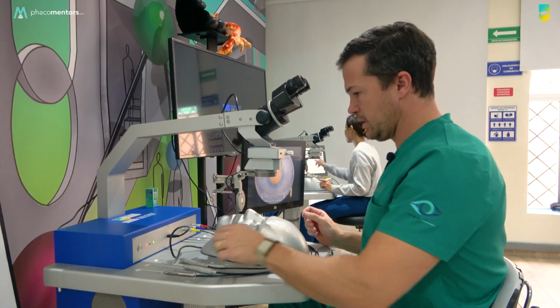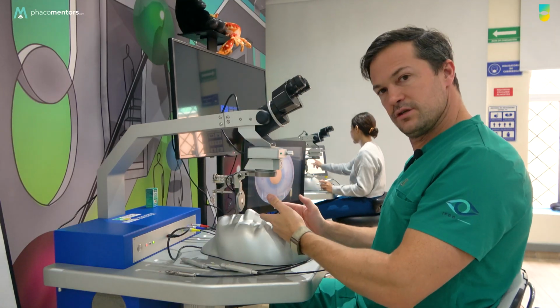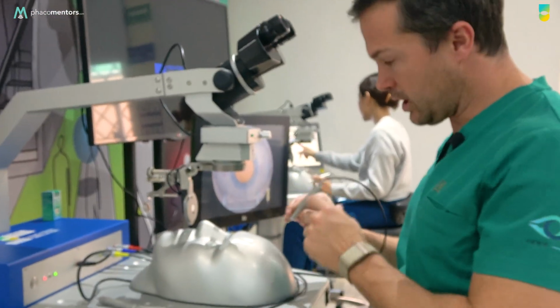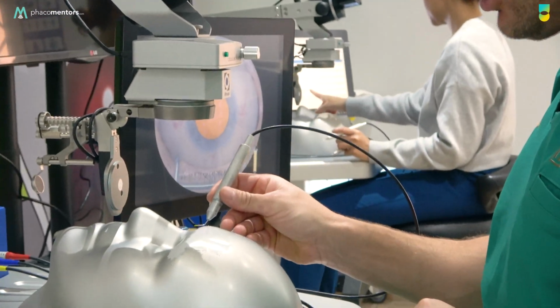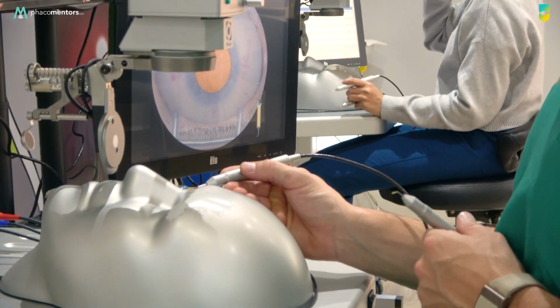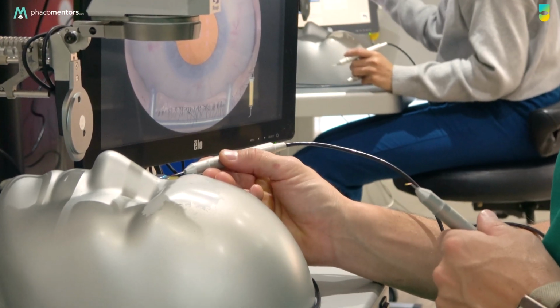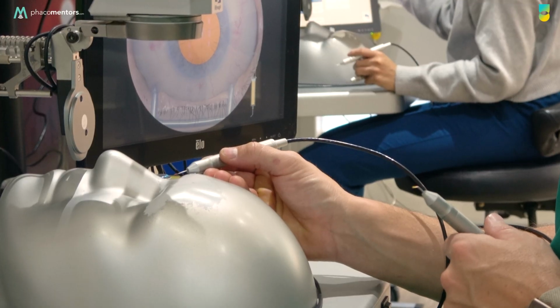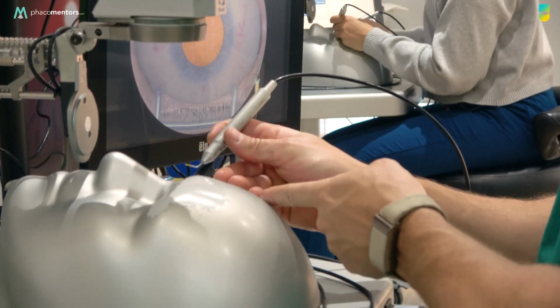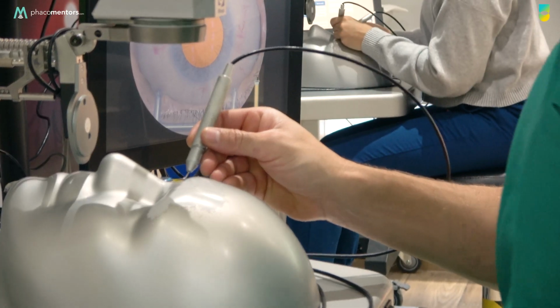And here, we're going to do a capsulorhexis. Look at this. We say that you need a fixation point and a way to grab an instrument. It's going to be different how to grab a second instrument, and then we're going to do a video for you on how to grab a second instrument or how to grab a handpiece. They're going to be different, okay? A handpiece needs a fixation point with the 3 fingernails on the forehead of the patient, but the instrument is going to be more horizontal. The second instrument, fixation point, 3 fingernails on the forehead of the patient, what we call the crab claw, very important. And here we're going to use it this way.